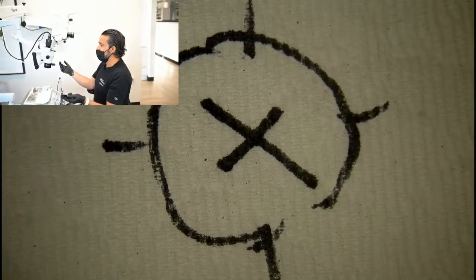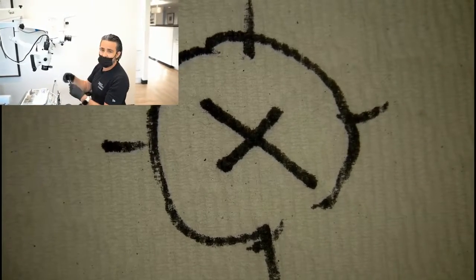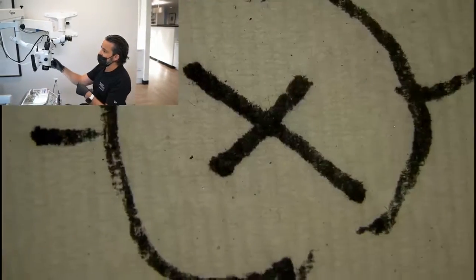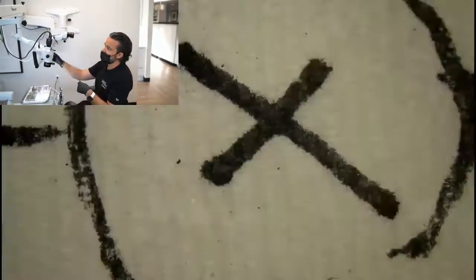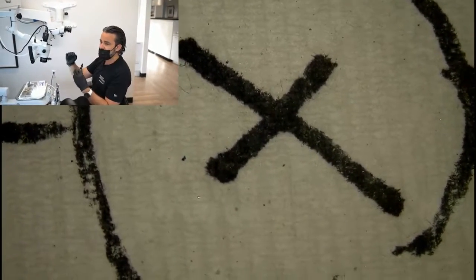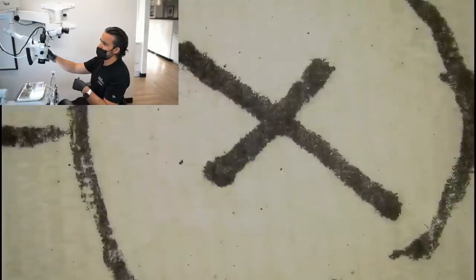But in real life, I'm working at a comfortable magnification. Most of the time my magnification level is here or here, and between just 2 steps it's not difficult to keep those 2 steps in focus, even if there's a little bit of discrepancy. And as you can see, as I'm going back and forth, it's just maintaining its focus.